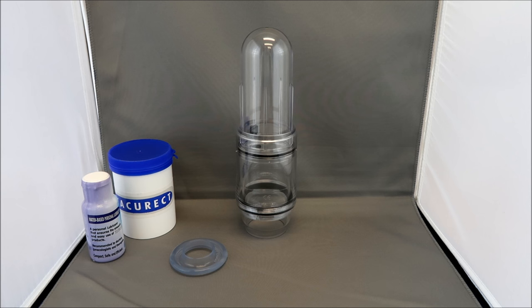Once you achieve the erection, our patented tension system will maintain the erection as long as it is in place.